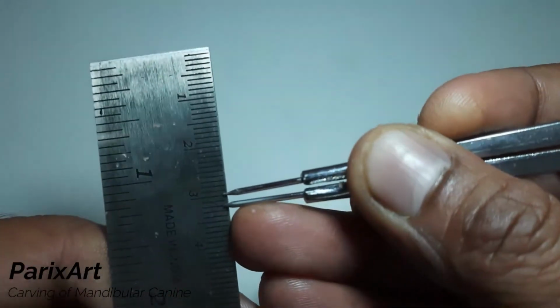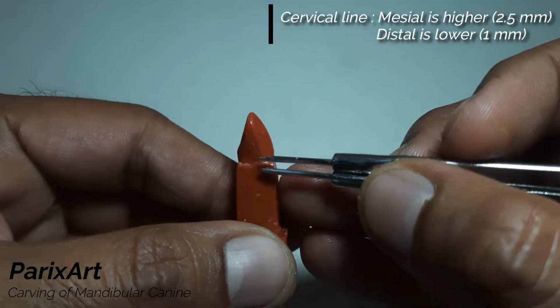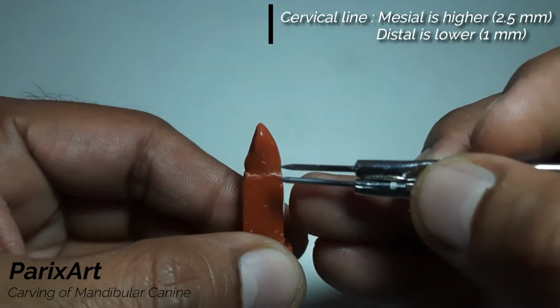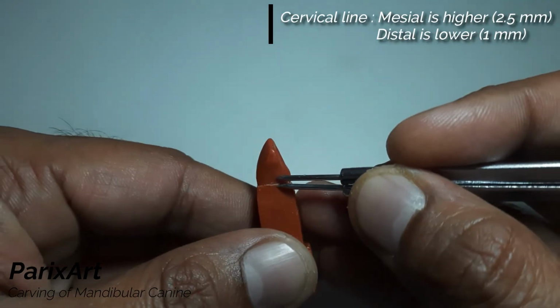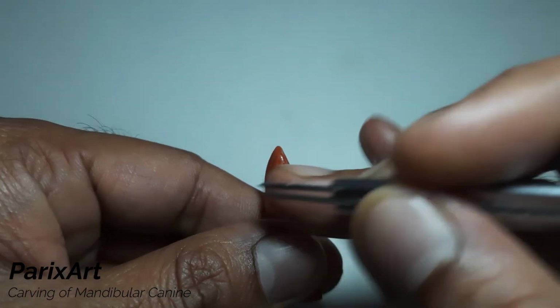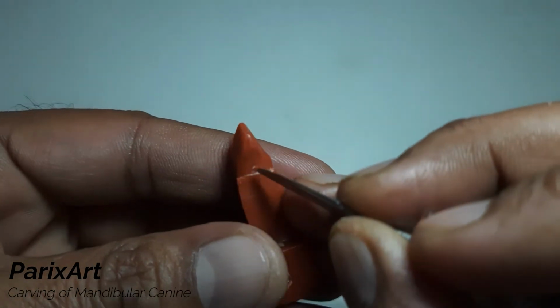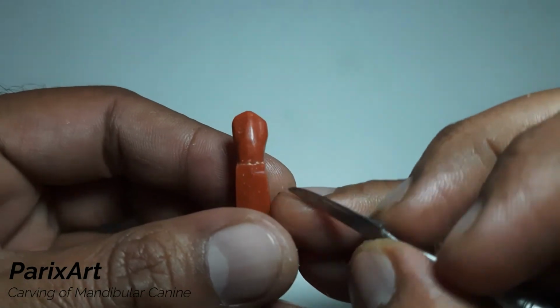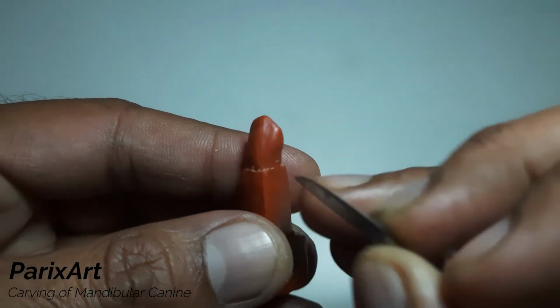We'll mark the height of cervical lines first at the proximal. Mark the crest of the mesial cervical line at 2.5 mm and that of distal at 1 mm. See the markings? Just draw the cervical line till here, connecting from labial cervical line up to these markings very lightly till the lingual cervical line.